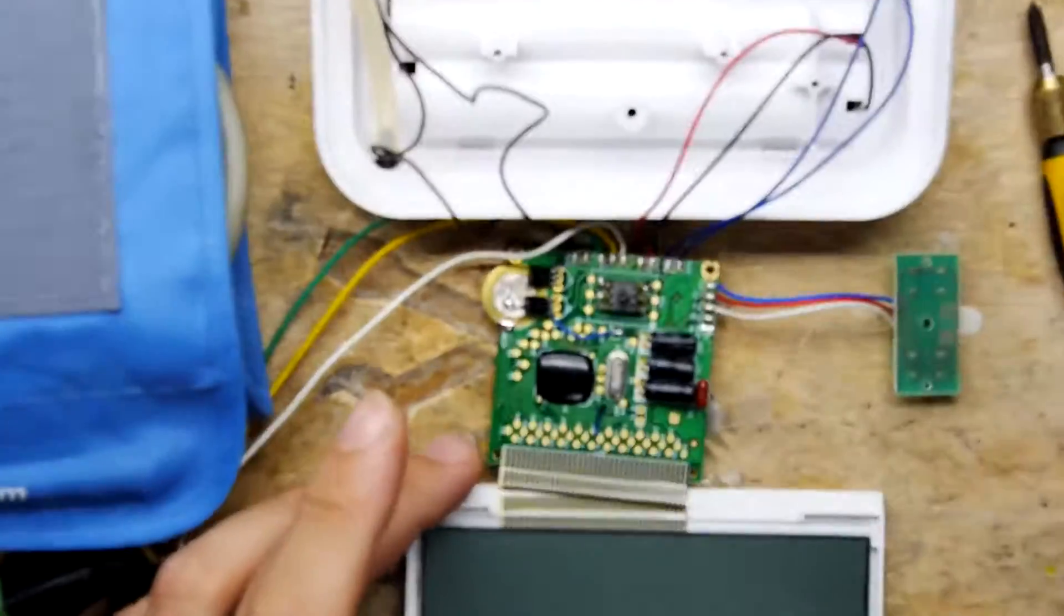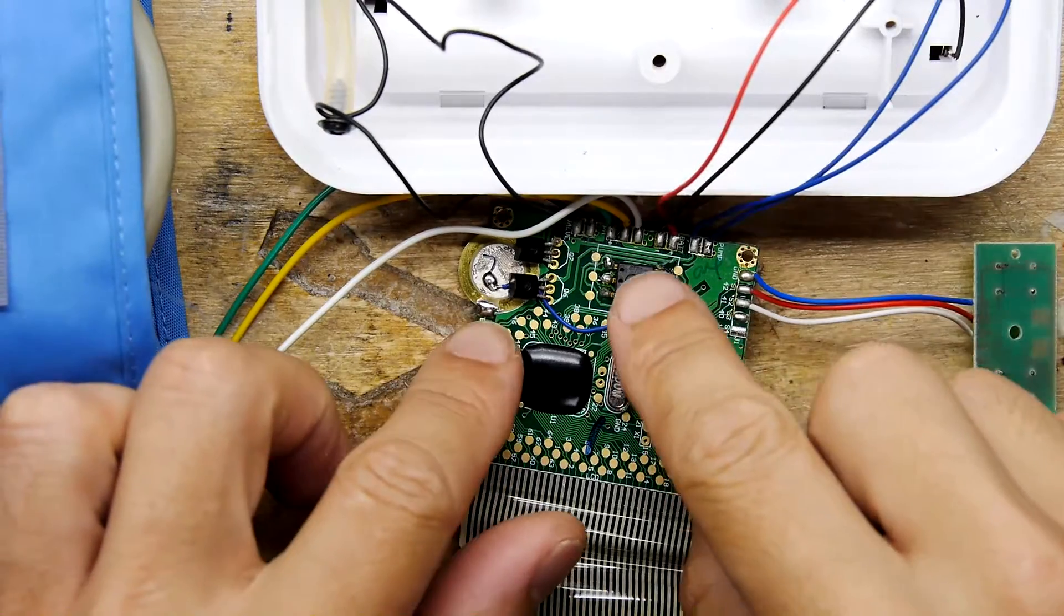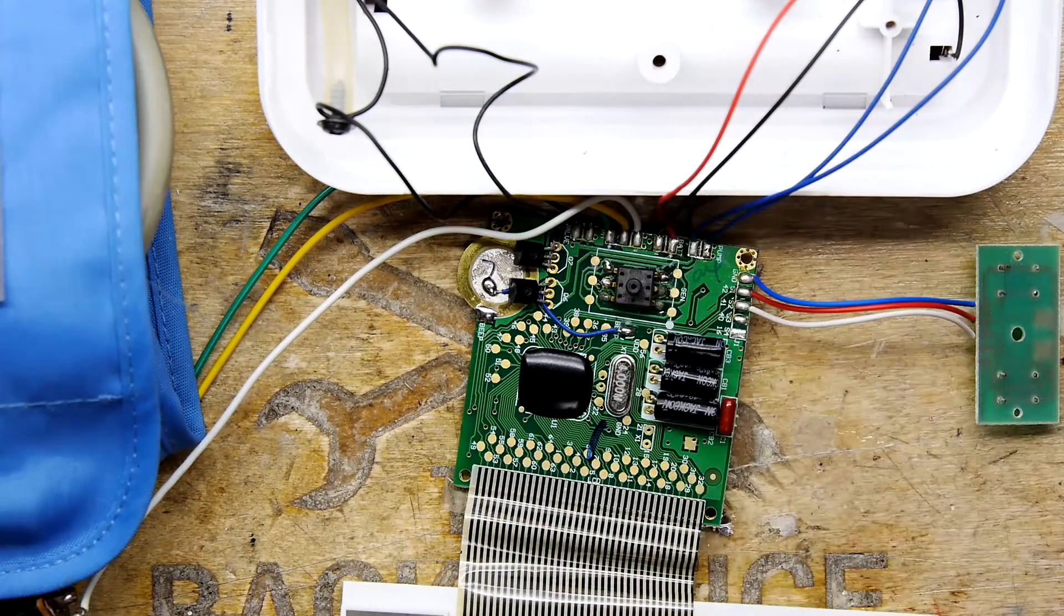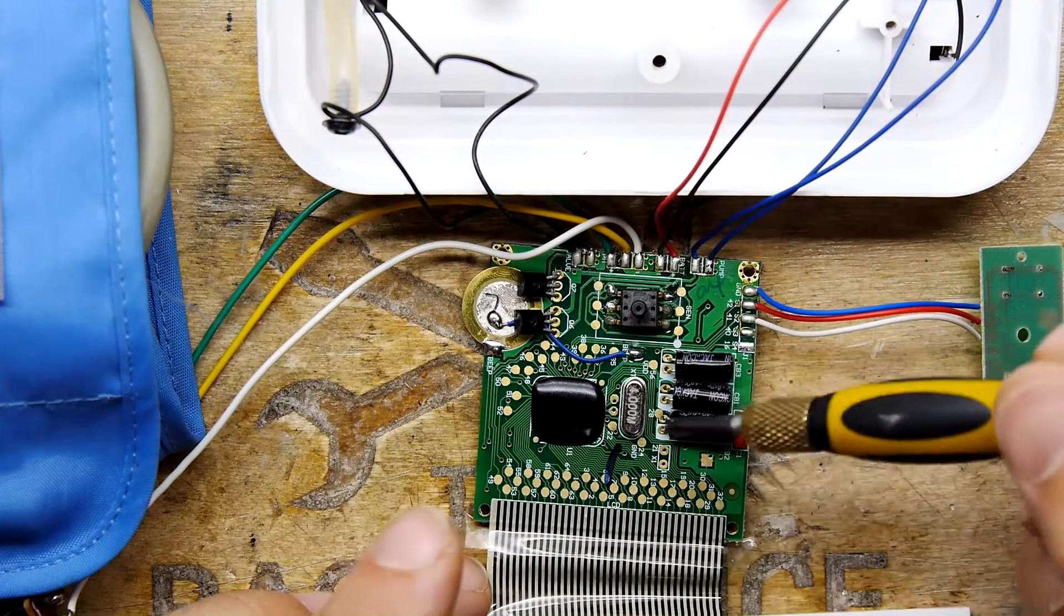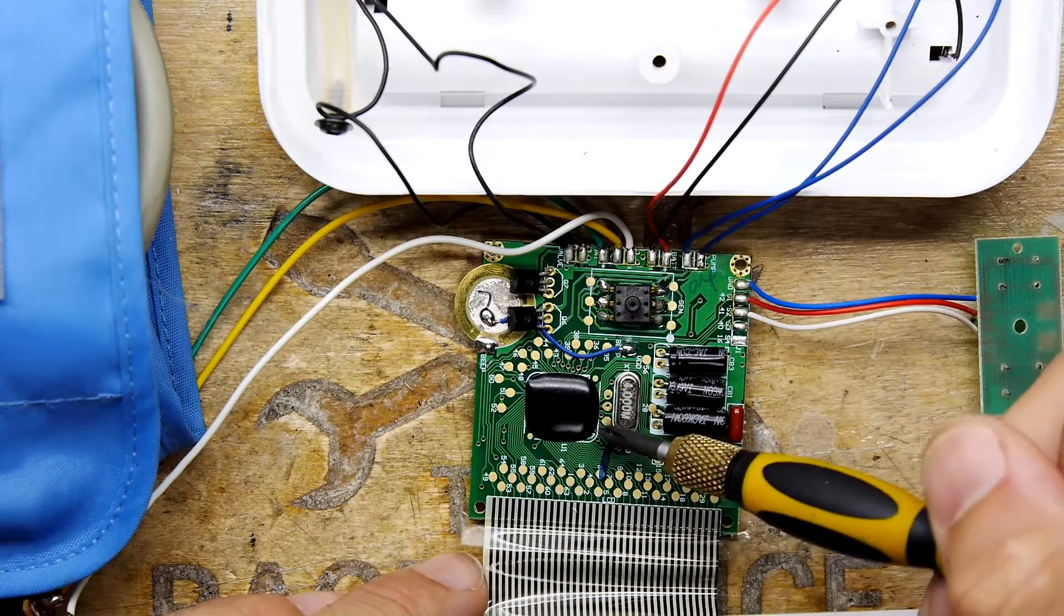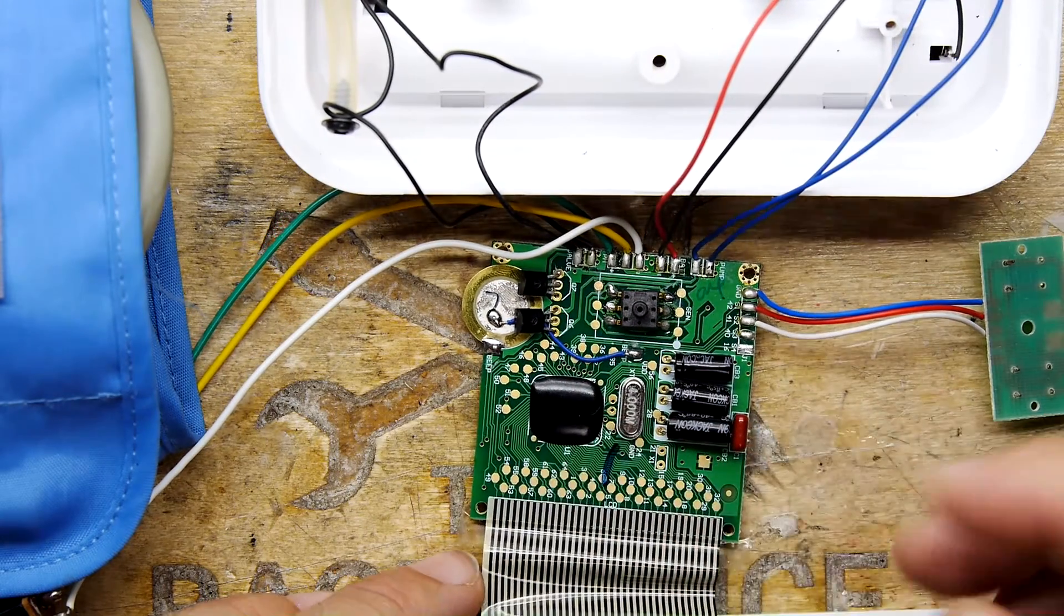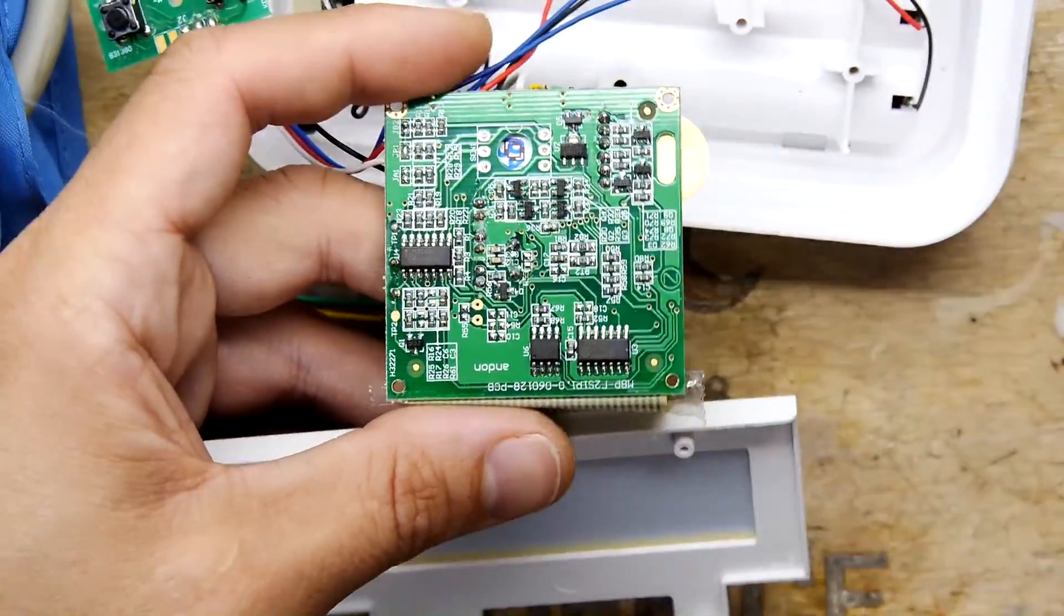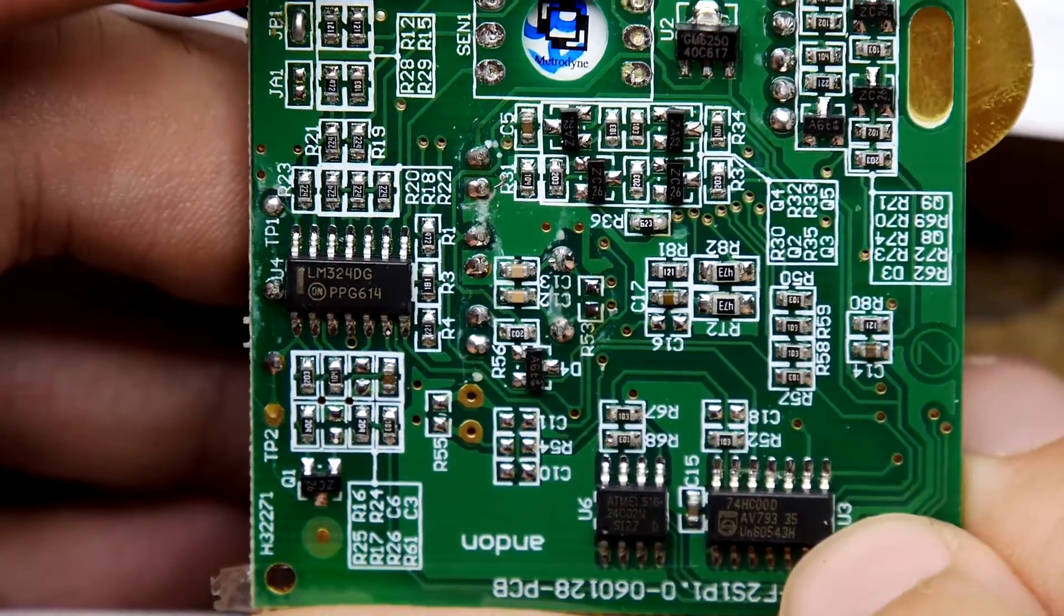So remember I was saying I was trying to work out how does it detect the pulse? It must be doing it only through pressure because we know that that's the only pipe that goes to that part. Interestingly though, you've got this black blob here, which I think is the screen controller now looking at it because we've got an awful lot of traces coming to this black blob. But then when I turn it over, let's have a look. There are some other components here that could be a micro. So we should have a look a bit closer at those, see if we can get a number off it.